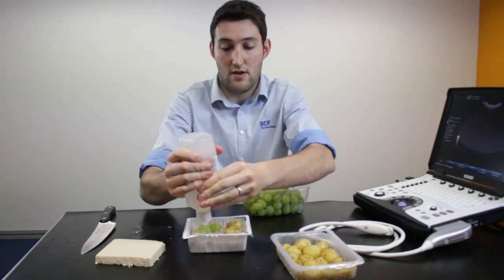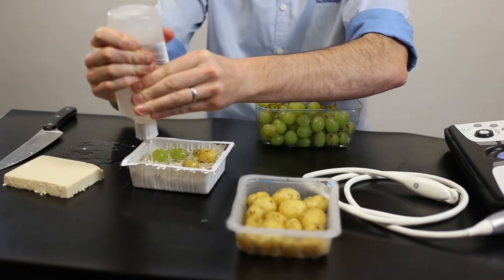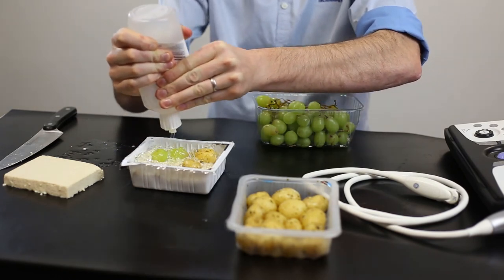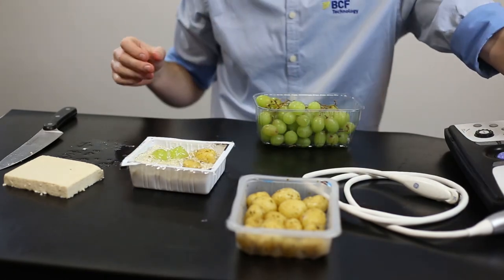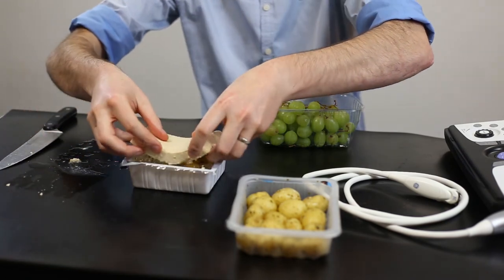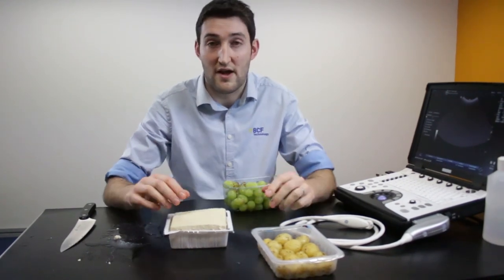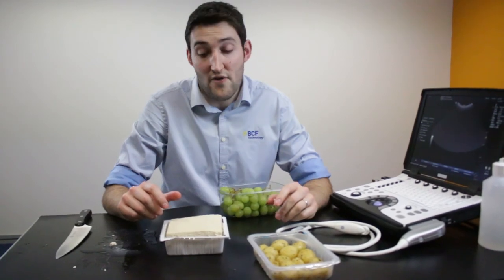Get some ultrasound gel and aim to fill in the gaps — chuck loads of that gel in there. Don't be afraid to put plenty in, because you don't want any gaps left with air; otherwise you'll get bright white lines on the ultrasound machine and shadowing and you won't be able to see anything. Once you've got enough gel in there, slap the top slab back on, then get some cling film, wrap the whole lot up, squash it all down, and you've got a perfect model for practicing fine needle aspirates.